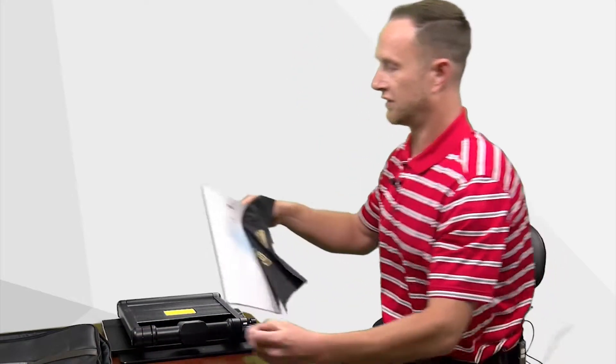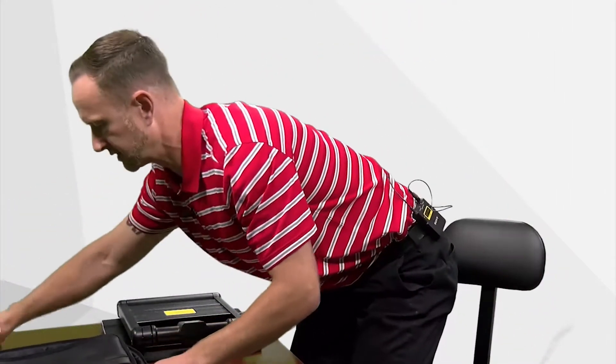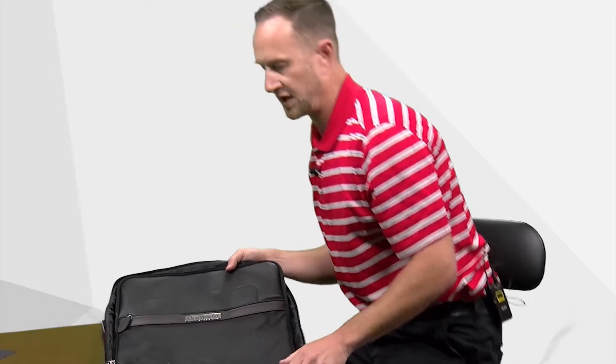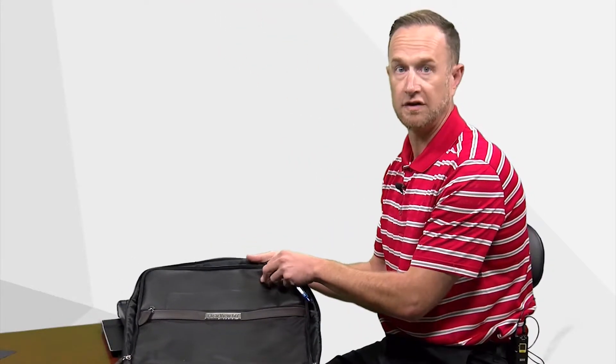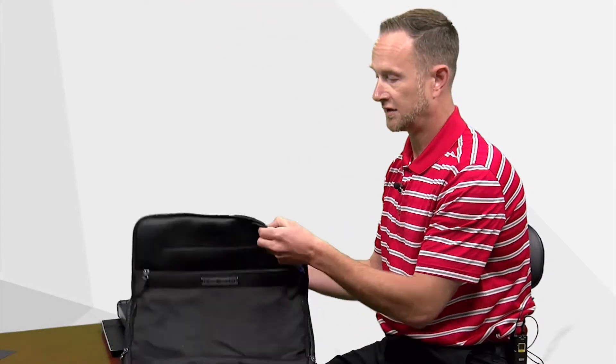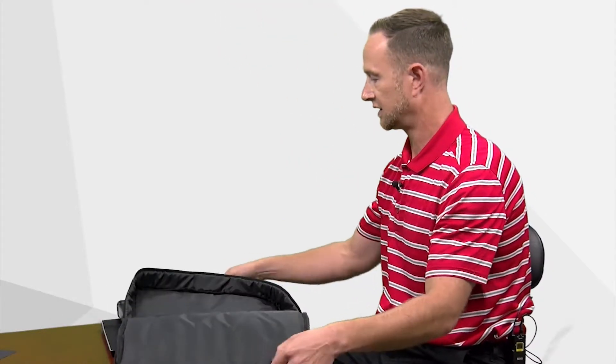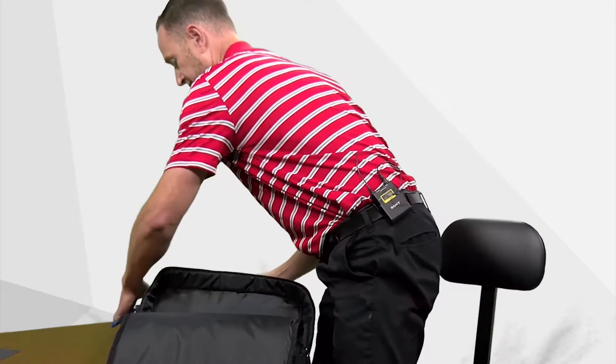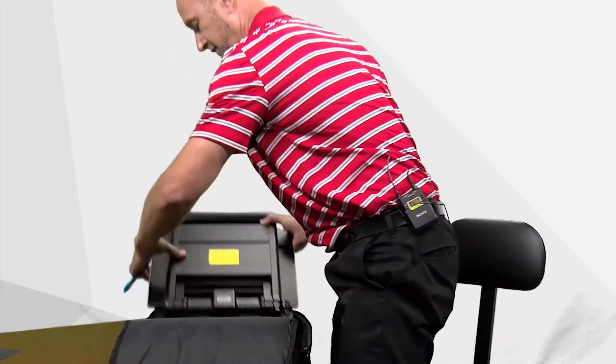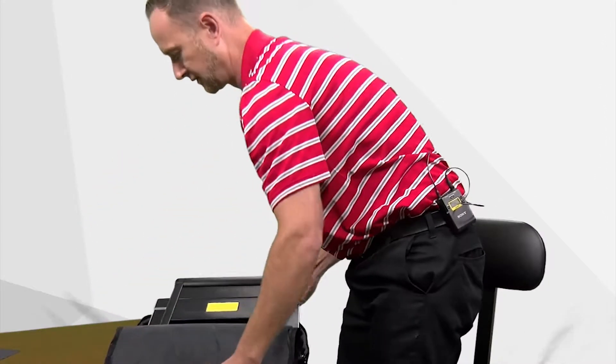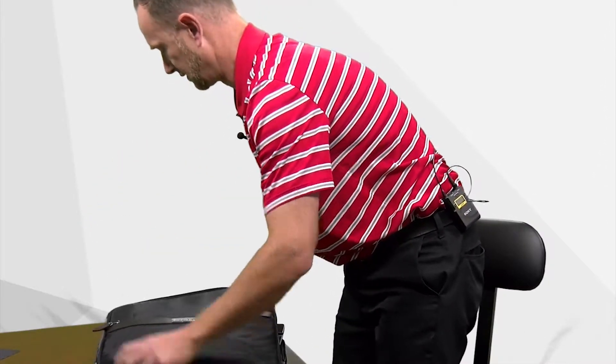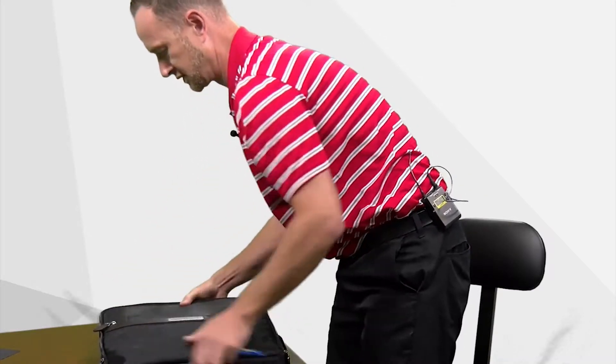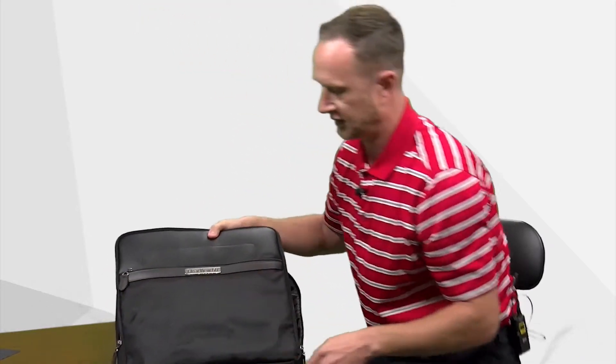And then one of the other wonderful features of this is the carrying case. It's got a really high quality carrying case. You just take the unit, slip it right in the carrying case like this and away you go. So obviously you can see in this package this is something that can easily be taken from class to class, home if that's the case, or whatnot.